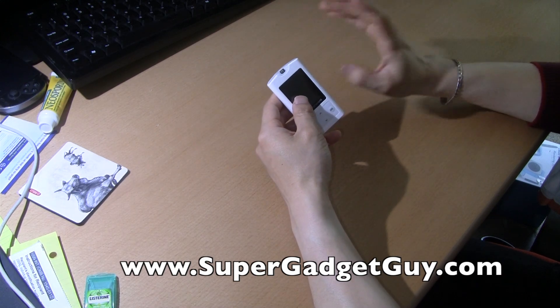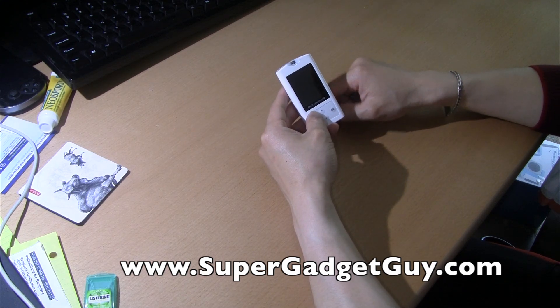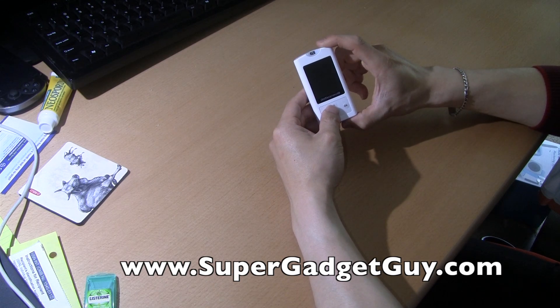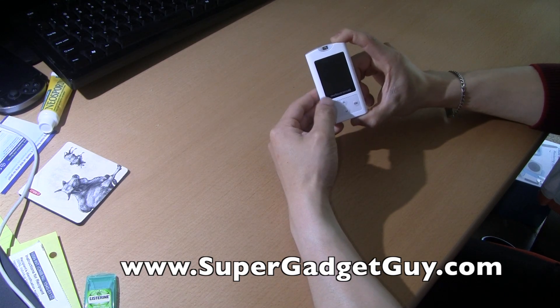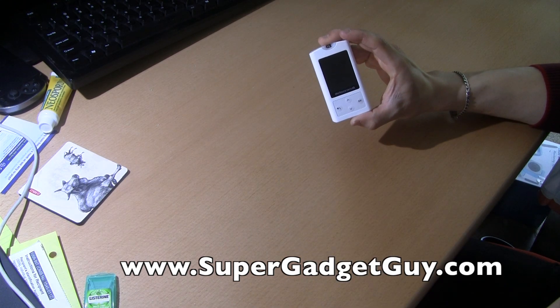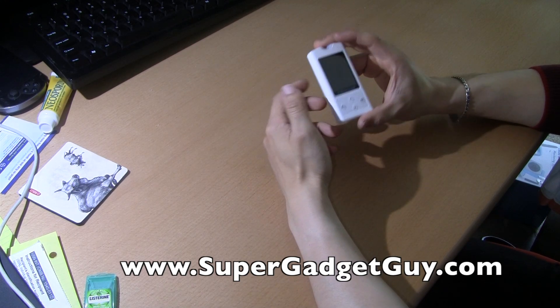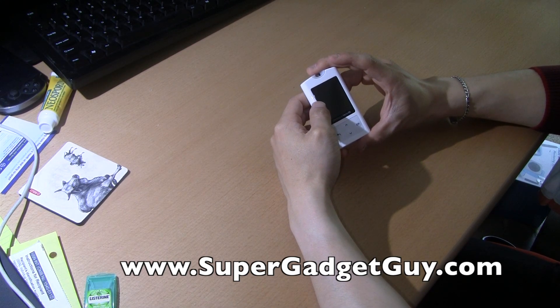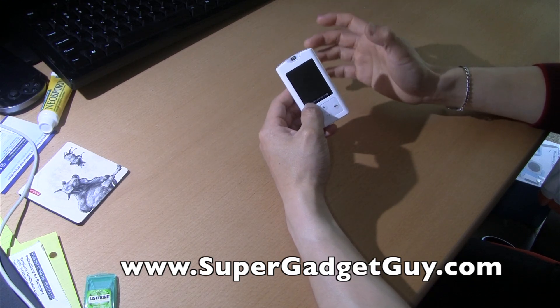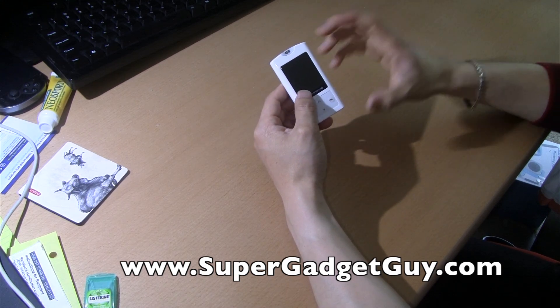The good thing about it is the large, easy-to-read LCD screen. If you have problems seeing a tiny screen, this one is very easy to see. Another feature is a predictive pattern: it can tell you that you've been having a lot of highs before breakfast or after dinner, and prompt you to do extra checks and make sure your insulin amount is correct. It's an intelligent feature.